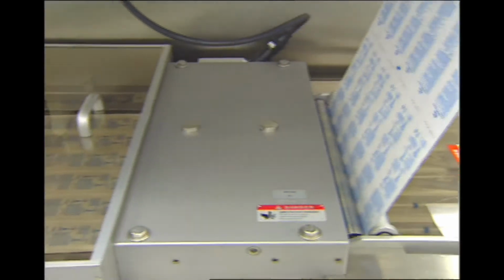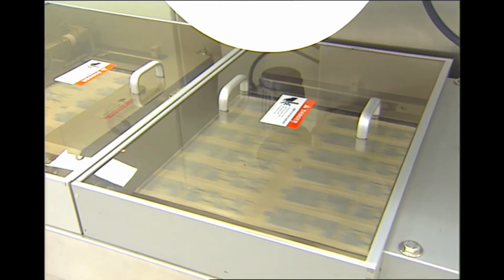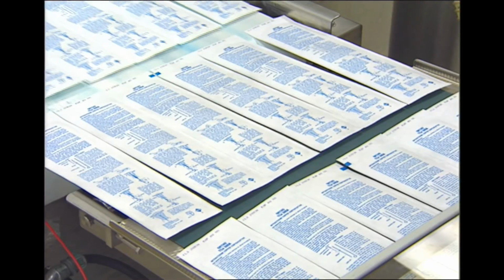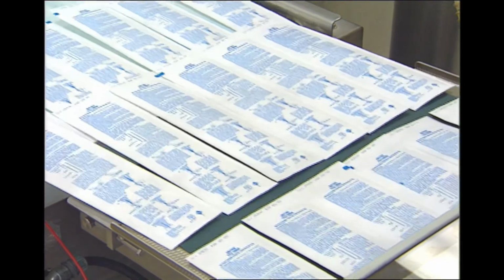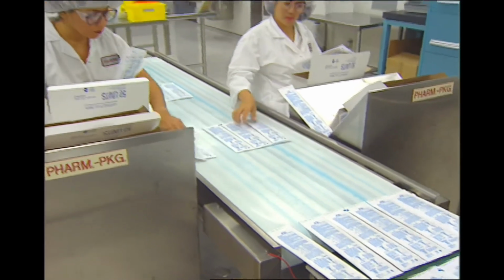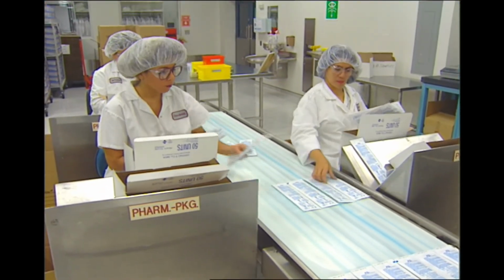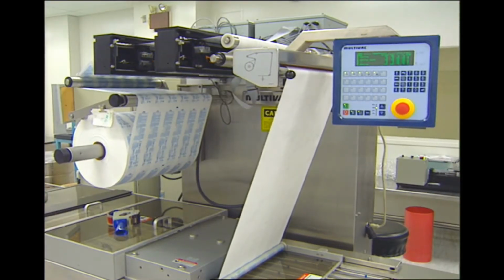These are packaged by a state-of-the-art multi-lane bagging machine. Microprocessor controlled with feedback sensor capabilities, the high-speed bagger ensures that seal integrity is maintained by precise temperature, time, and pressure control of the sealing jaws at all times. The Multivac bagger provides high throughput, low cycle times, and highly reproducible seals. This translates into low cost and high quality. The package integrity is critical to maintaining the long-term sterility of the IUD.